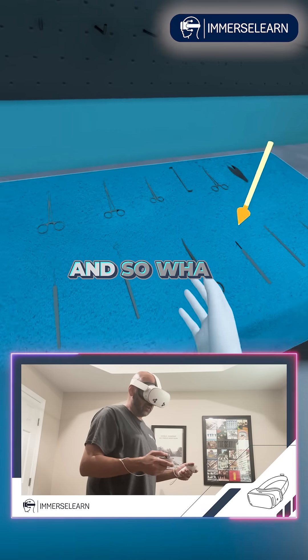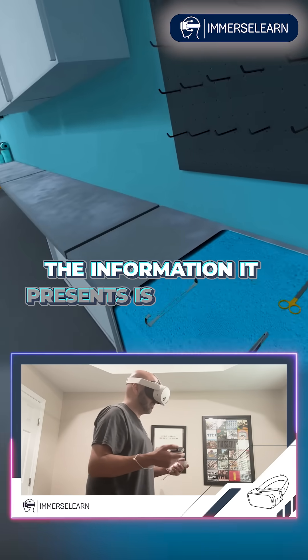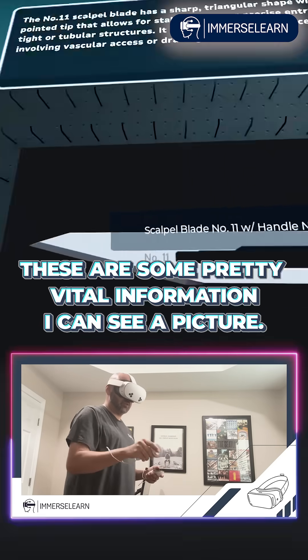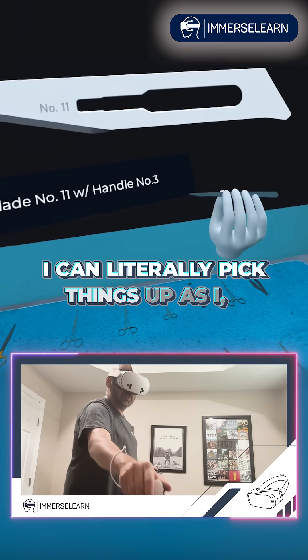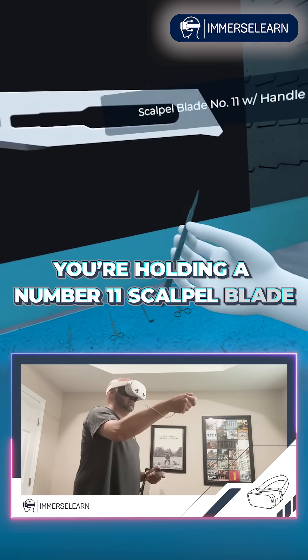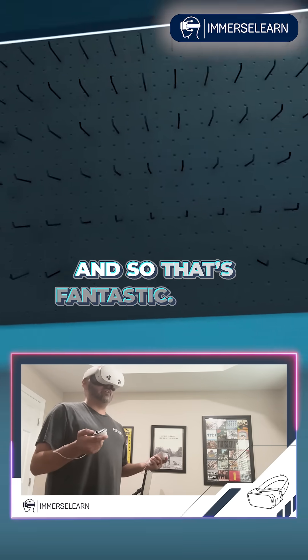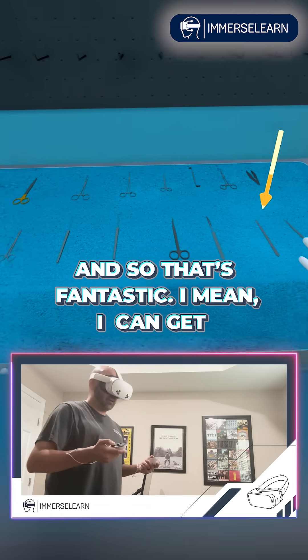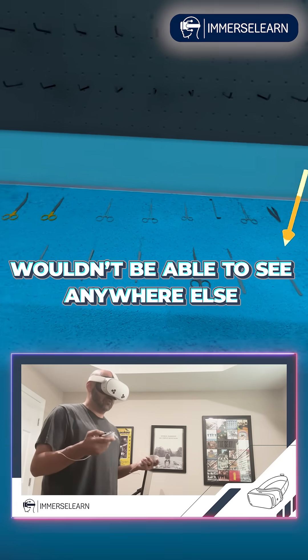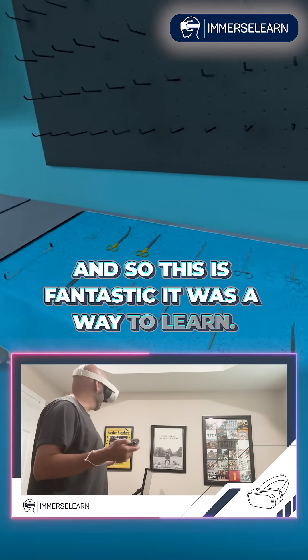What I like about it is the information it presents is fantastic. They need some pretty vital information — I can see a picture, I can literally pick things up as I use them. You're holding a number 11 scalpel blade mounted on a number three scalpel handle. I can get modern instruments that you wouldn't be able to see anywhere else unless you actually worked for a hospital. This was a great way to learn.